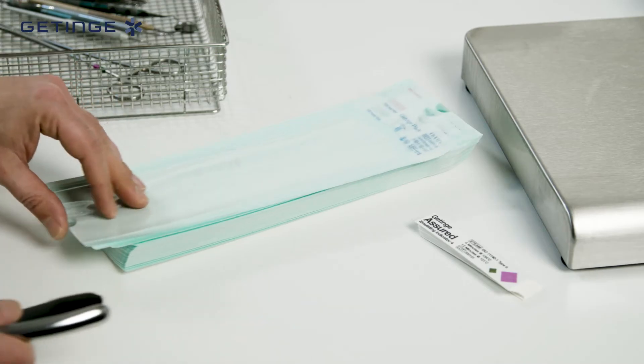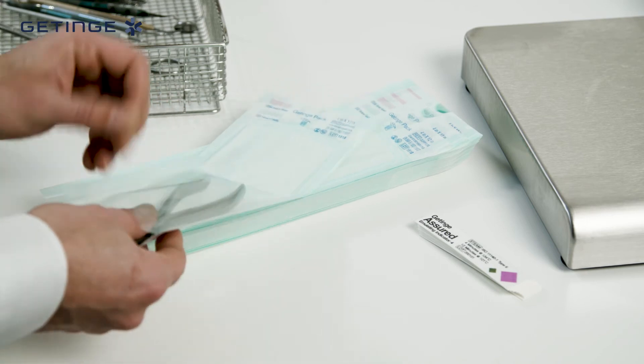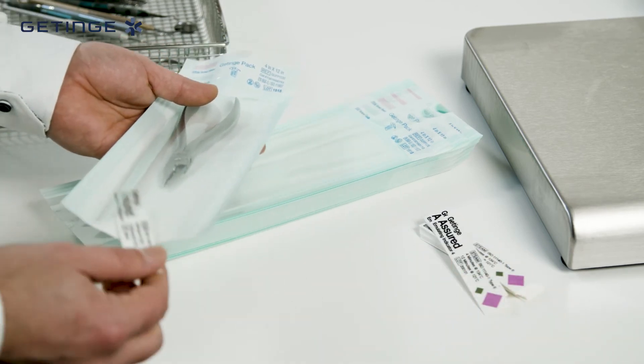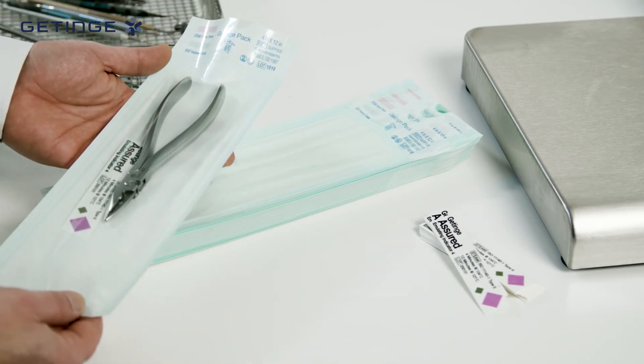Getinge ProSeal sealers are designed to efficiently, effectively and reliably seal bags, rolls and pouches made from medical paper, Tyvek or non-woven materials.